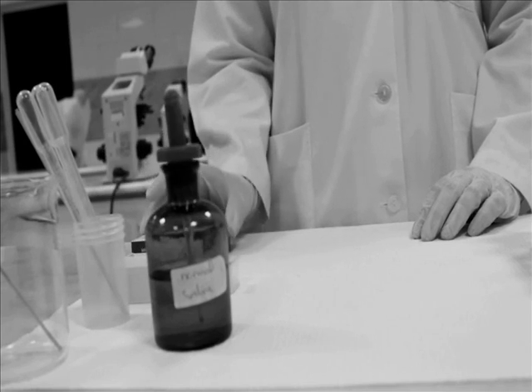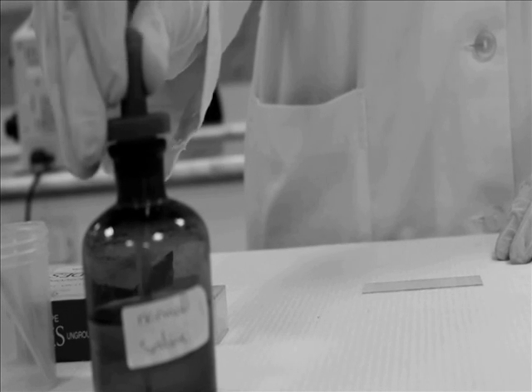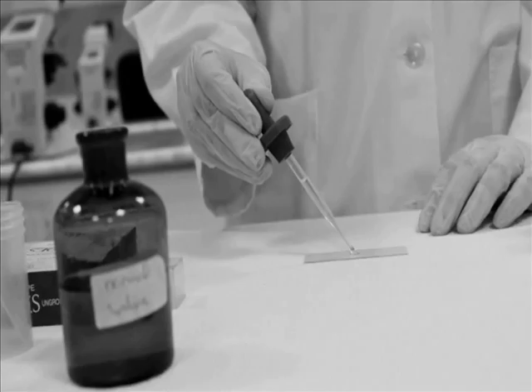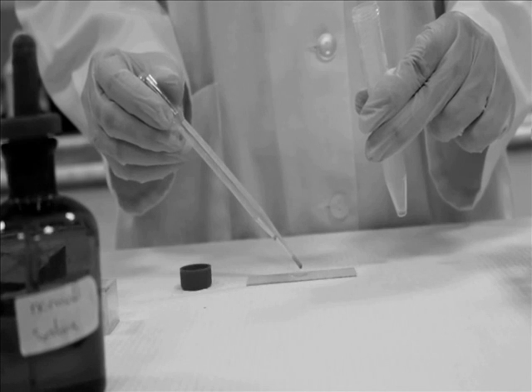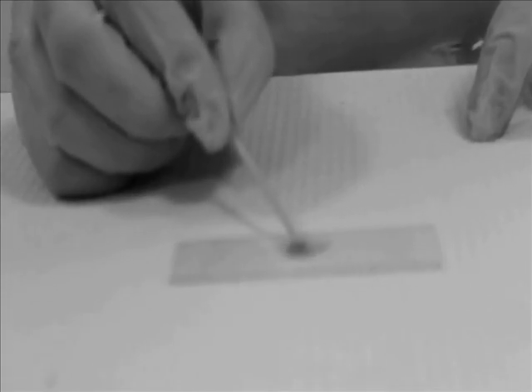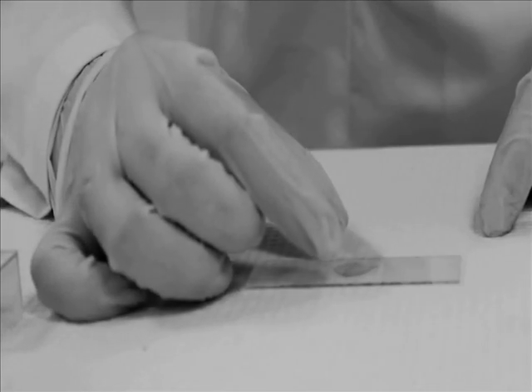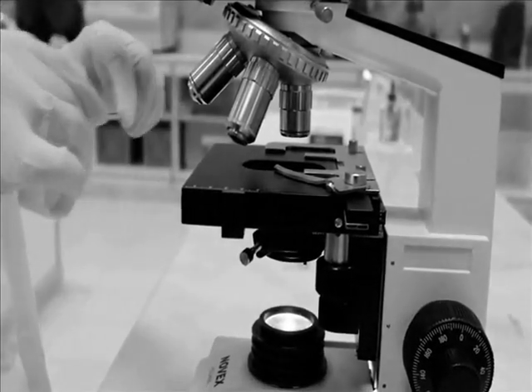Take a clean slide. Add a drop of normal saline. Add a drop of the sediment. Then mix it well with a wooden stick. Put the cover slip and avoid air bubbles. Next, see the slide under the microscope.